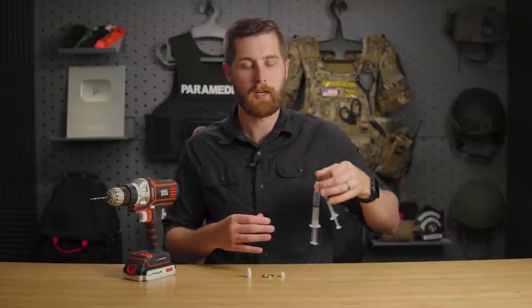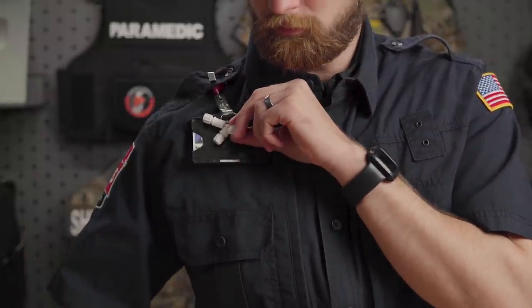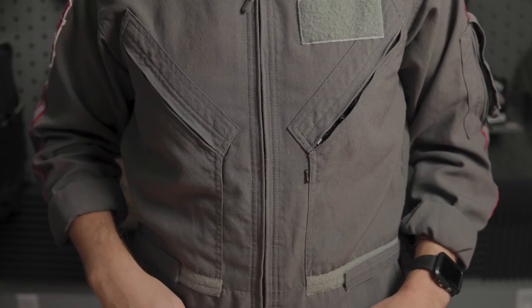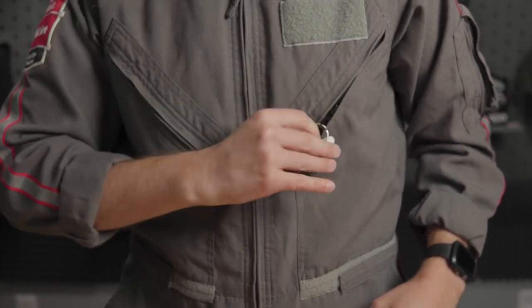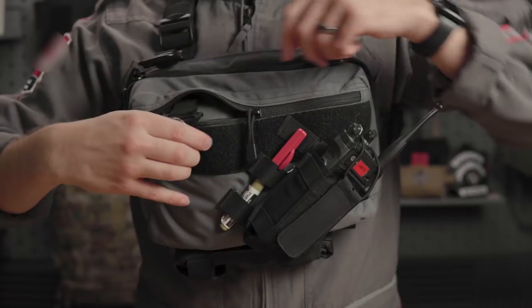You can place this key ring on the front of a uniform, on a flight suit, or in whatever bag you're carrying. It gives you an easy way of storing syringes somewhere that's easily visible, they're organized, and it prevents the plunger from being pushed down so you're not losing medications.